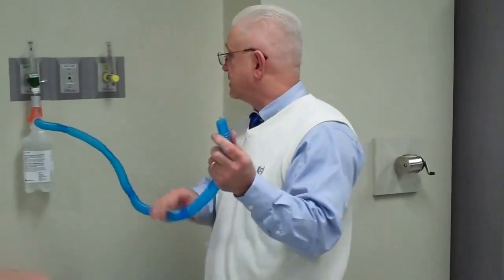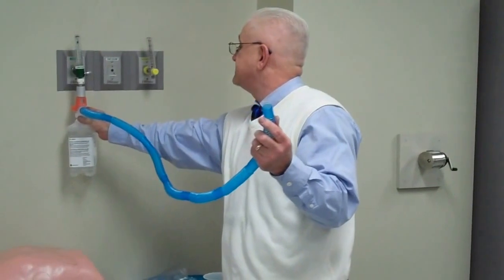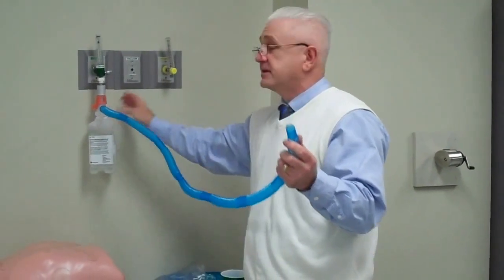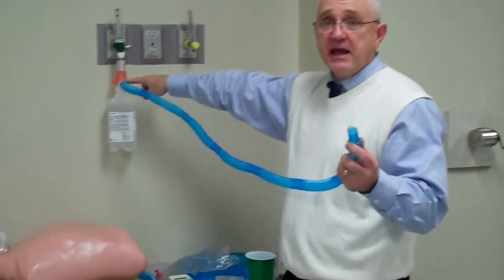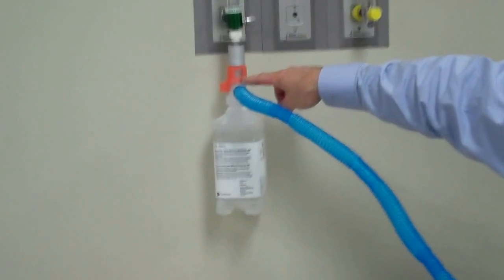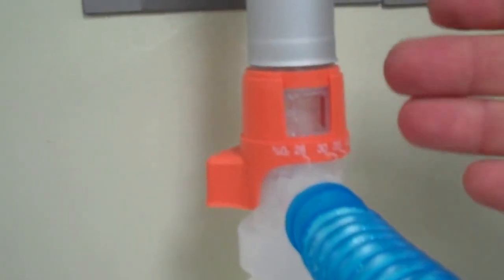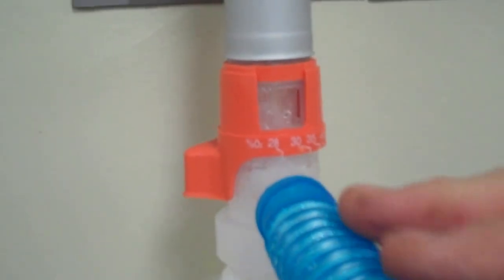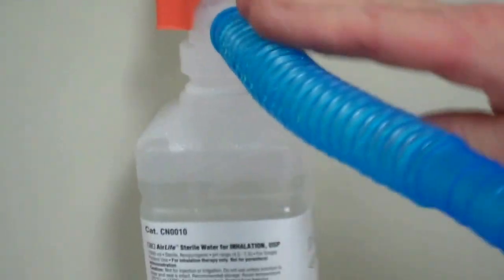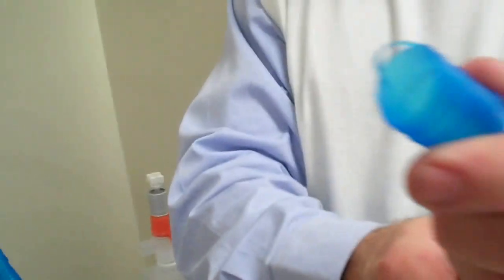Here we have an aerosol setup at 28% FiO2 analyzed. We can take a close-up right here at the air entrainment port on the air entrainment nebulizer. It's working well. We have some condensation building up in here, but right now we're not having a problem and we're having a nice steady mist.